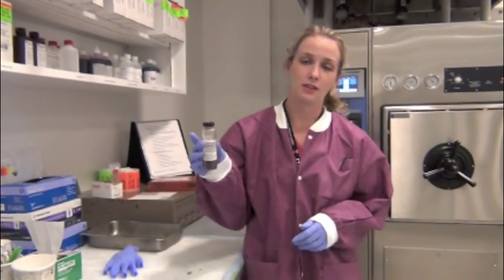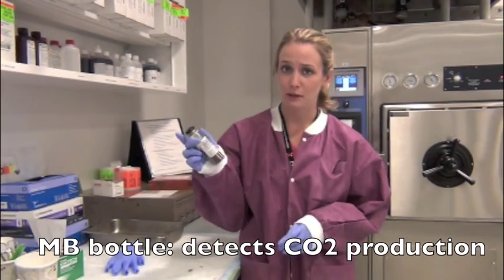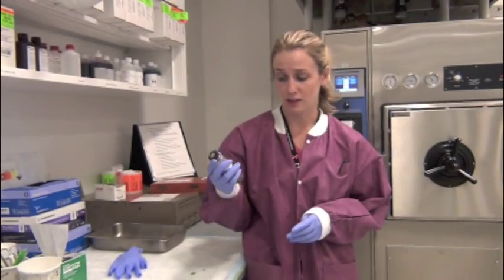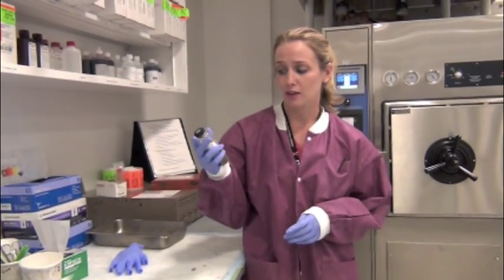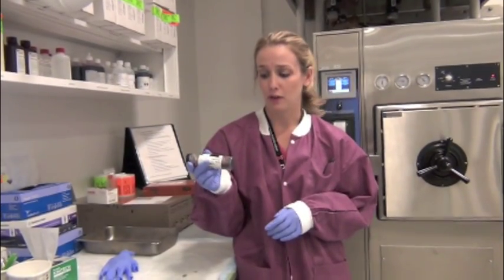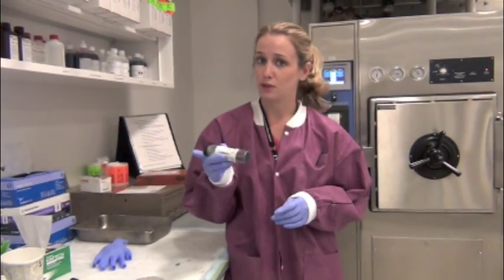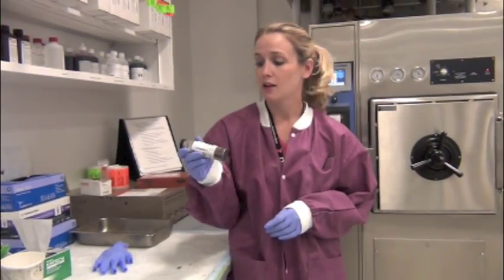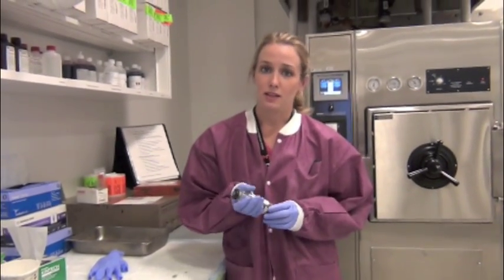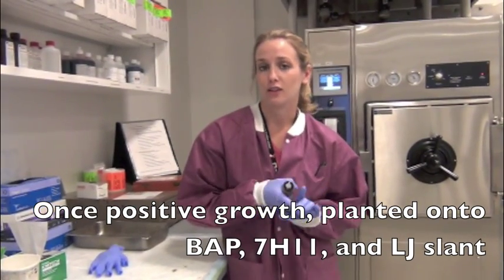One other common media used in the acid-fast bacilli laboratory is the MB bottle, which stands for mycobacteria bottle. This we use for blood specimens, peripheral blood as well as bone marrow. This bottle is loaded onto an instrument and uses a carbon dioxide sensor to check for growth. So if there is mycobacteria present, they'll consume the oxygen and produce CO2, and that's what's flagged. Once the bottle has been flagged, we'll once again stain it, and if we do see acid-fast bacilli, that's when we plate it onto our other 3 media, the blood agar plate, 7H11, and the Lowenstein Jensen.